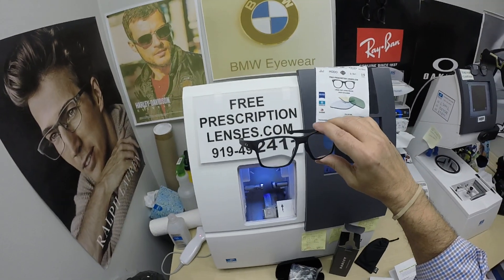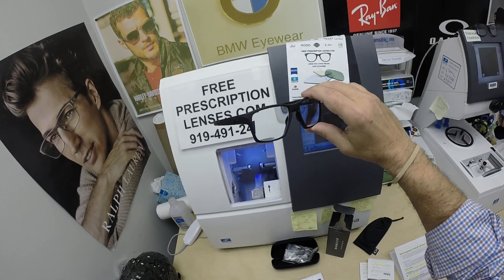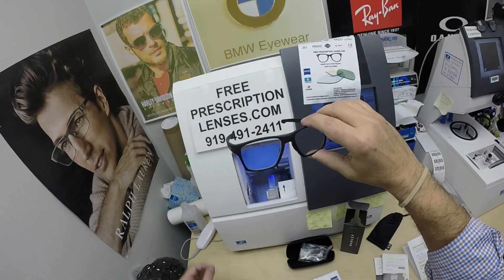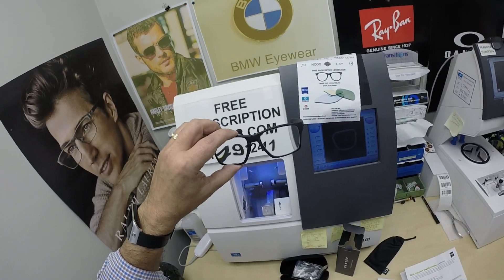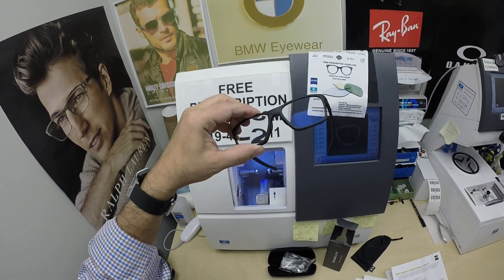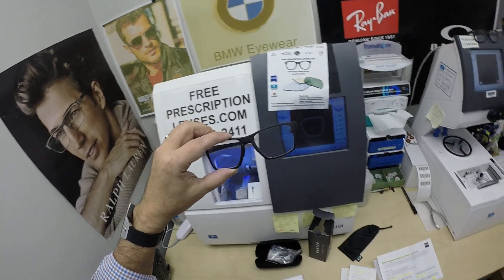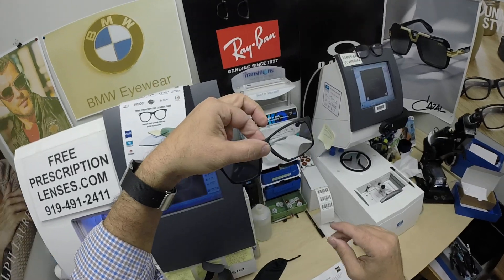No other seller does that on the internet. I'll also ask for a selfie request. Don, I'd love to have two — one with you indoors showing these clear, one with you outside showing the photo fusion extra gray. And maybe then you'll see the Duravision platinum — it has the least amount of reflex of any of the anti-glare coatings, but this is what they look like indoors.